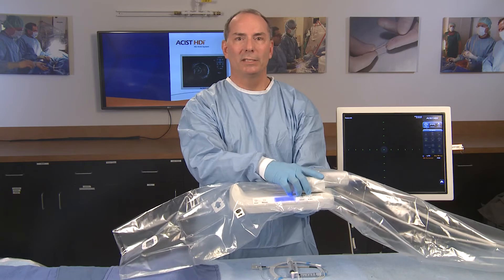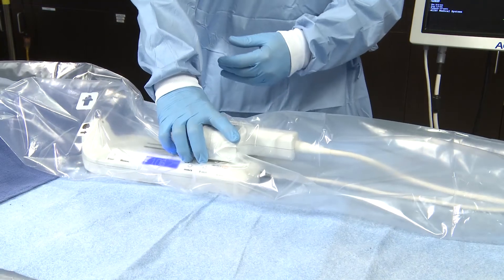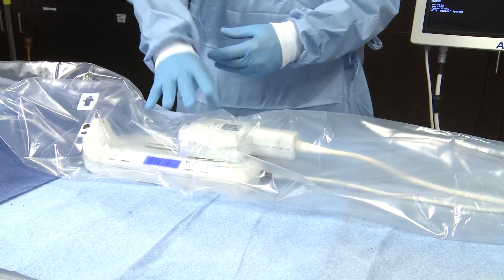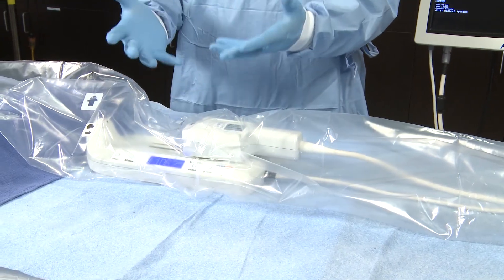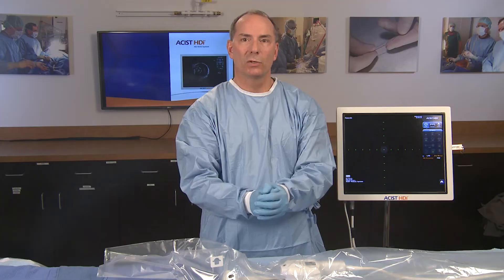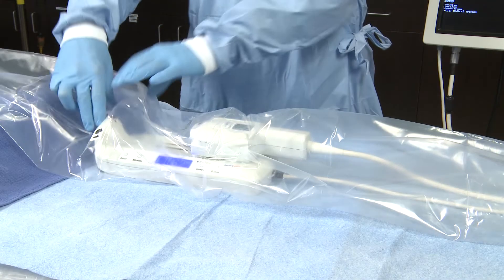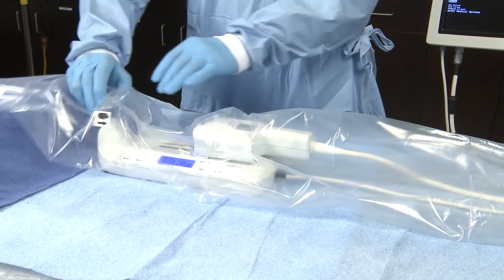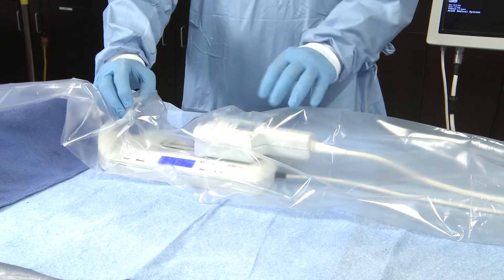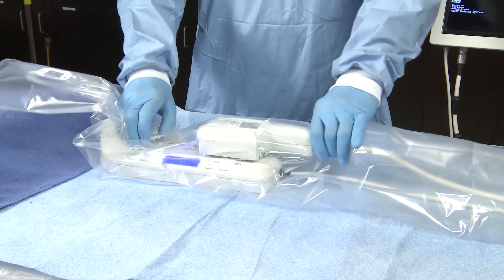Placing the PIM and LTS assembly on a flat, even surface, the sterile operator secures the sterile sleeve to the PIM by fully seating the three pins on the sleeve into the nose of the PIM.